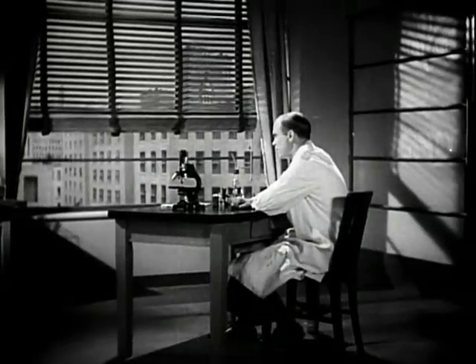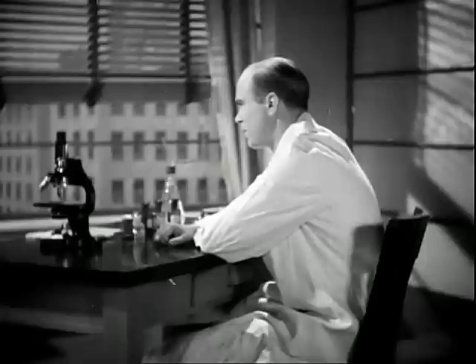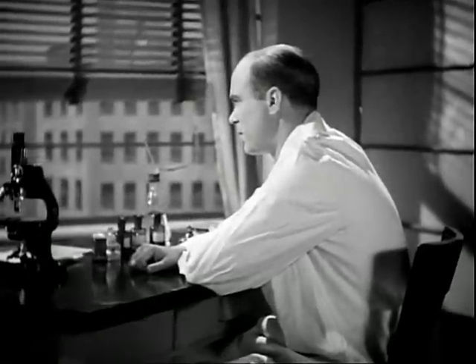In the front line of the fight against tuberculosis is the general practitioner. He sees the patient first, and upon his skill and judgment depends the patient's future. There are certain diagnostic procedures every general practitioner is capable of carrying out. One of these is the examination of the sputum. To refresh our memories, Dr. Ralph S. Muckenfuss, Director of the Bureau of Laboratories of the New York City Department of Health, will demonstrate a simple technique of sputum examination.